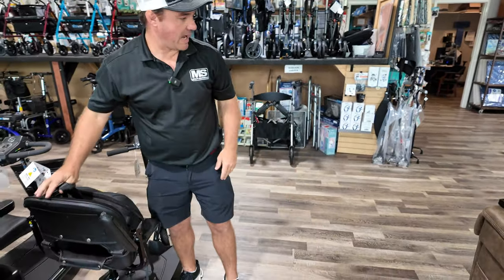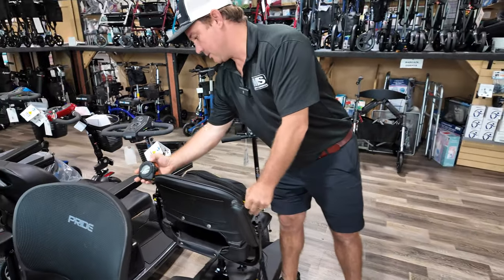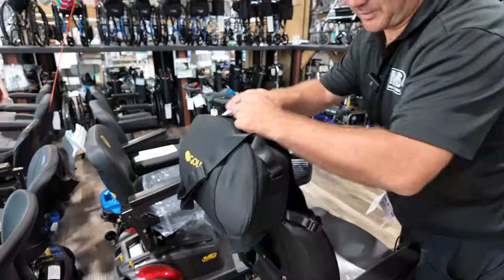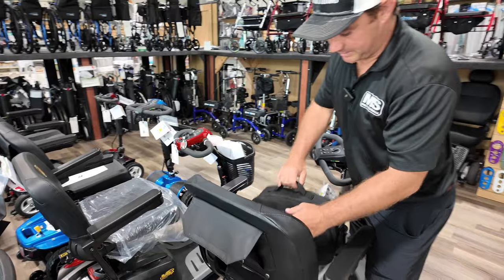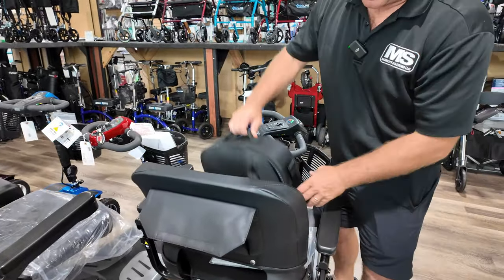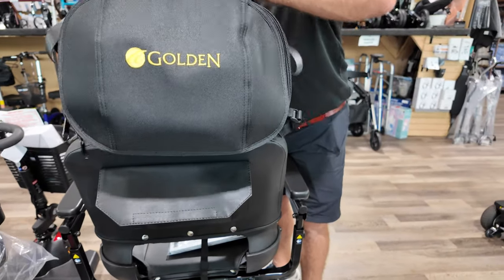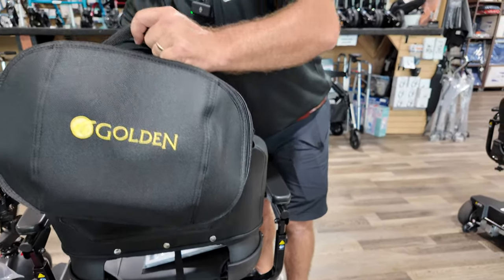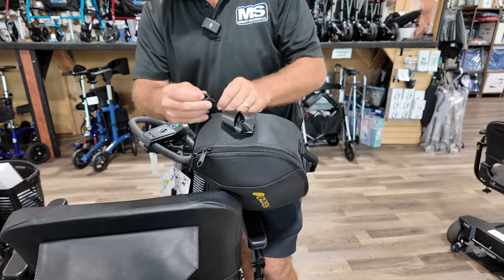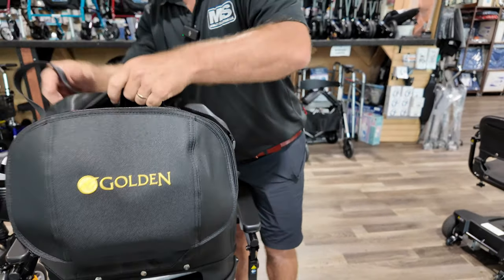The width of this back went on really nice — it was about 17 inches. So this is a Revo, where the back's a little bit wider — I think this is like 20 inches across. So I would just take it here, and there are other bags out there, but we do like these. You just adjust this strap and I would imagine it would go on there.